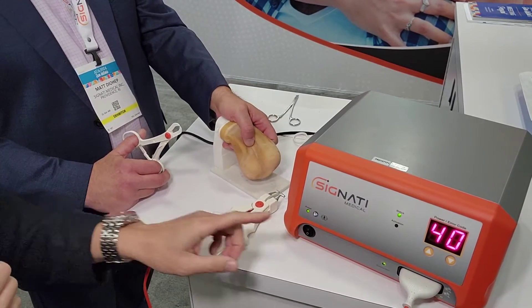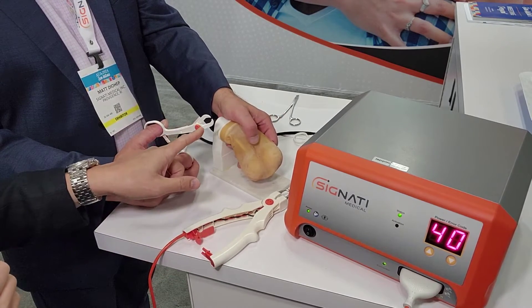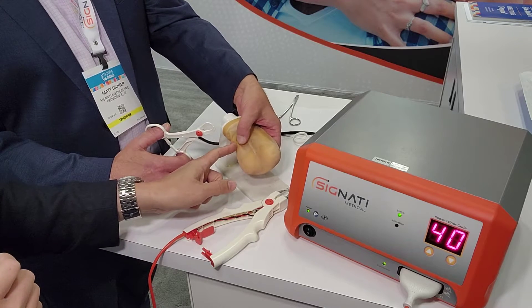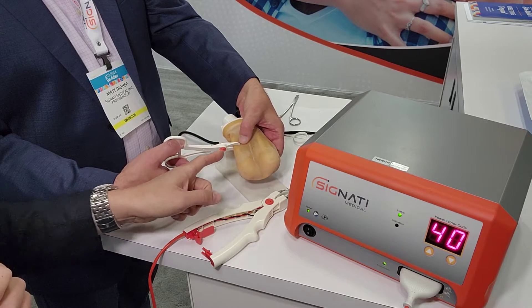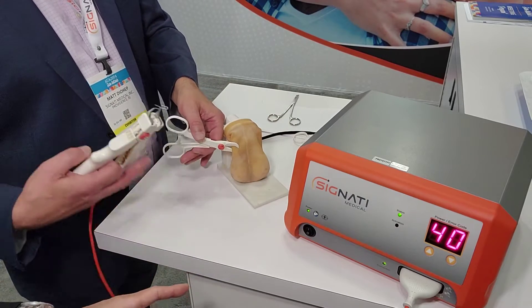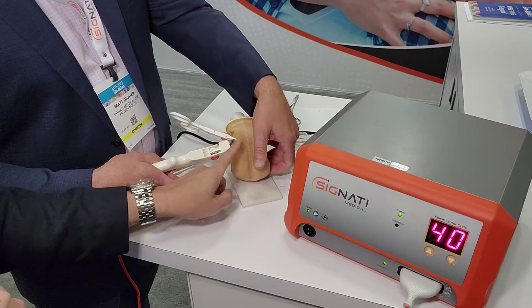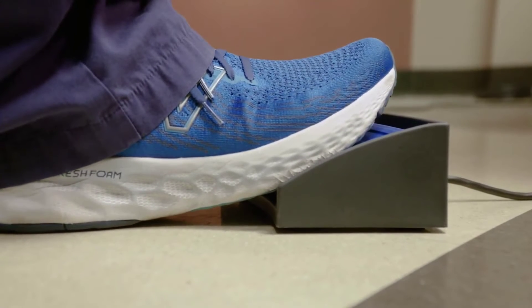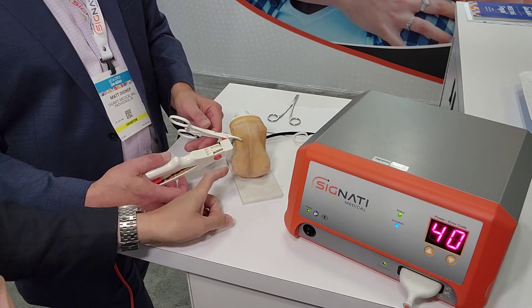This is the generator over here, and this is a simulated scrotum. There's a handpiece that delivers the radio frequency energy, and this clamp is used to help you isolate the vas. Matt is going to simulate the scrotum vas isolation right there, and you bring it to the edge of the scrotum using this plastic clip, isolating the vas to the edge of the scrotum on the ipsilateral side. Then you take this RF generator handle — it takes a little getting used to. You put it across the vas, press the pedal, apply energy, and you hear the beep. Once it's cooked, it's divided.